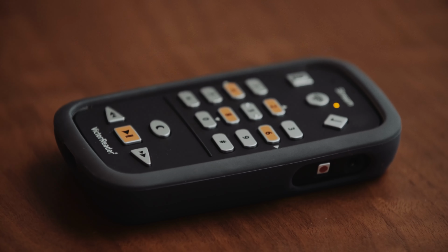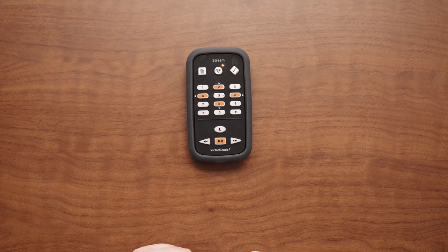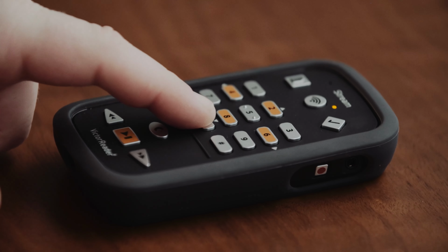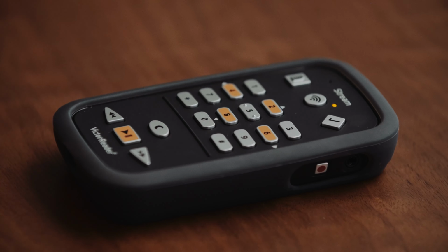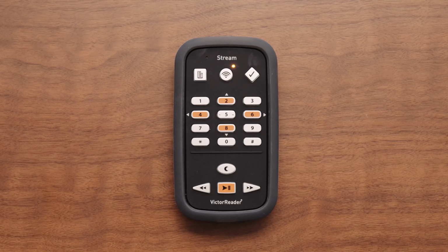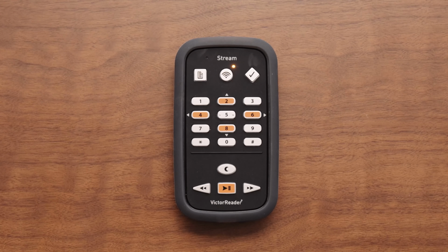VRS will then announce 3 user keys processed. You can listen to BARD books and magazines after the NLS authorization keys are downloaded and installed. Note, press the info key 0 to verify the key installation. The VRS will then announce 3 user keys in the About Victor Reader section. If you do not hear this message, the VRS is not authorized to play NLS BARD material. Repeat the steps to manually install the authorization.